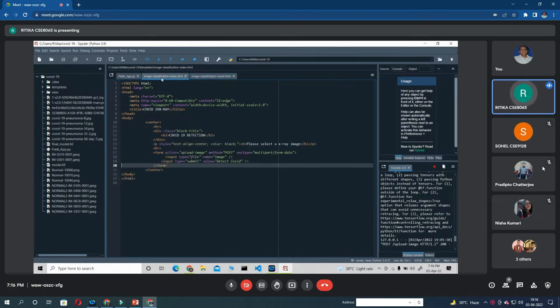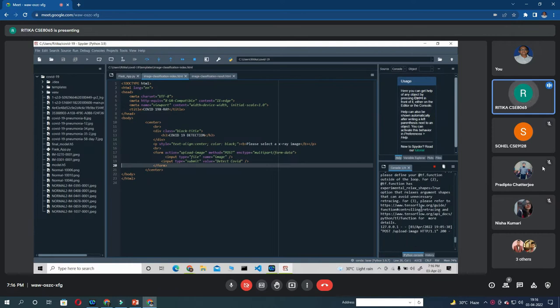Right now I have just made the simple designing. I have not done much of the designing portion. I will do it later on. So I am just running the app and showing you all.